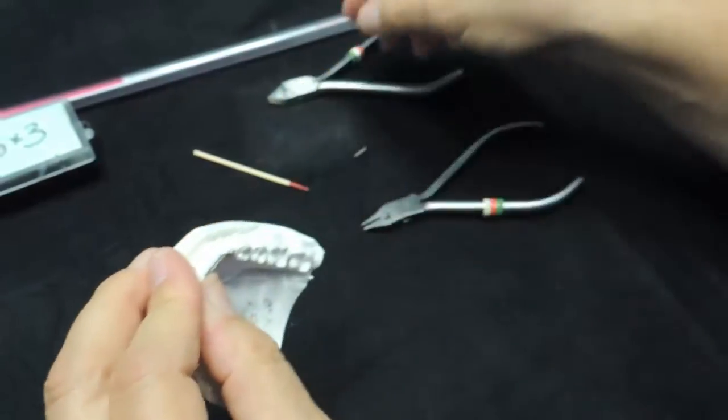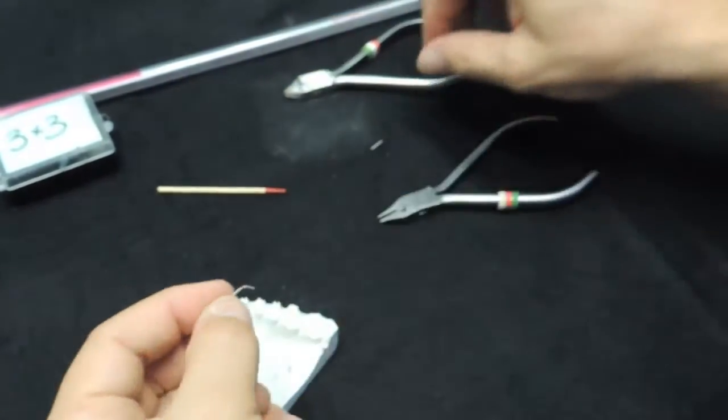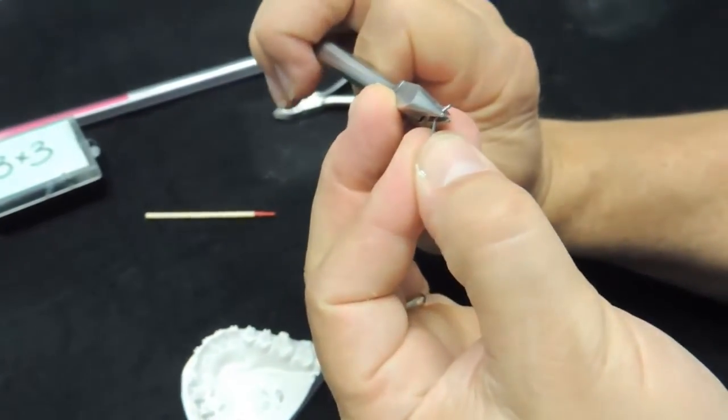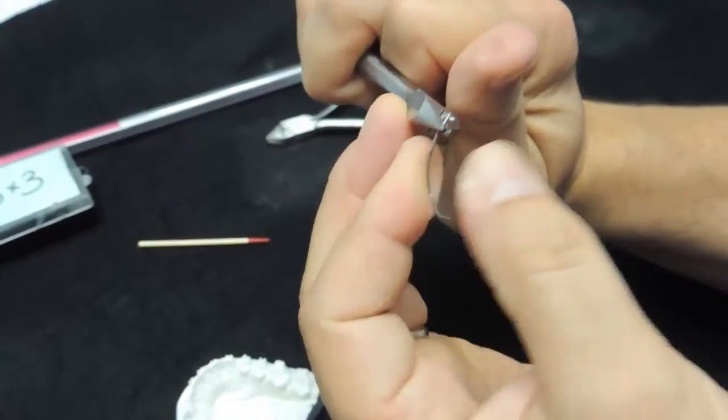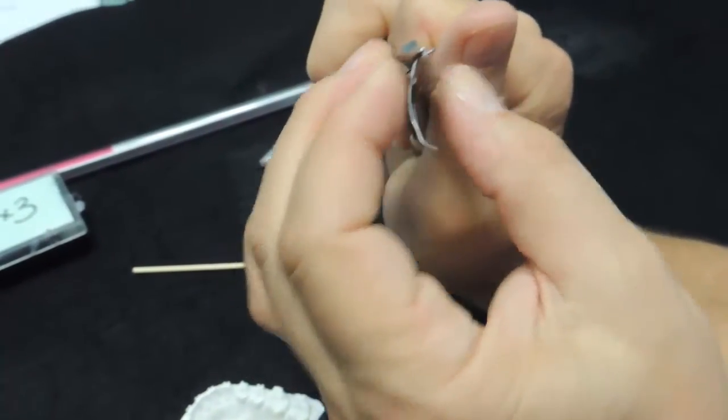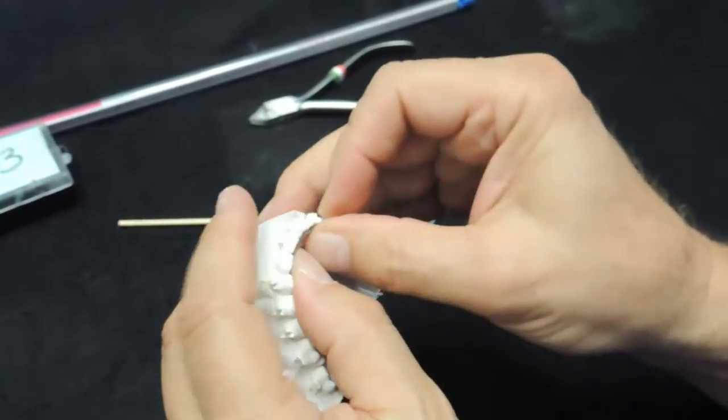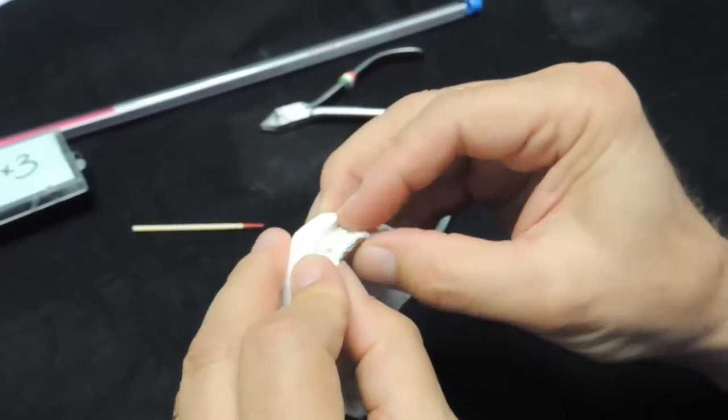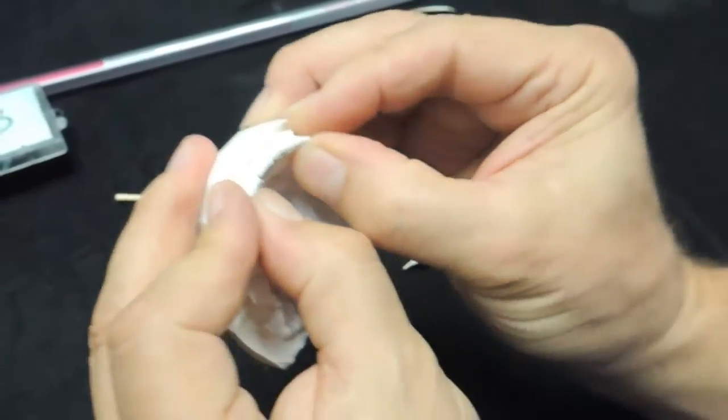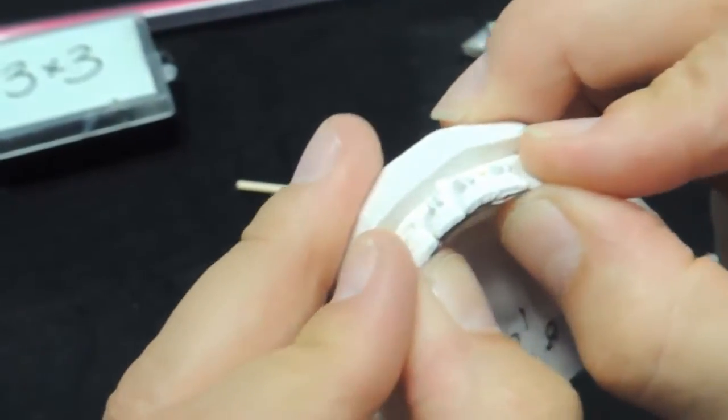Okay, I made that just a little long. It's easy enough to fix by taking the bird beak, take the flat end of the bird beak, squeeze that wire flat again, and then make a new bend. A little bit shorter there. Okay, so now we've got that adapted to the model.